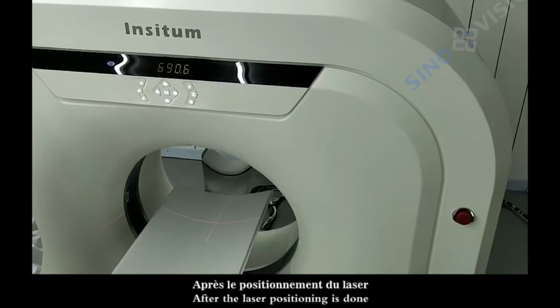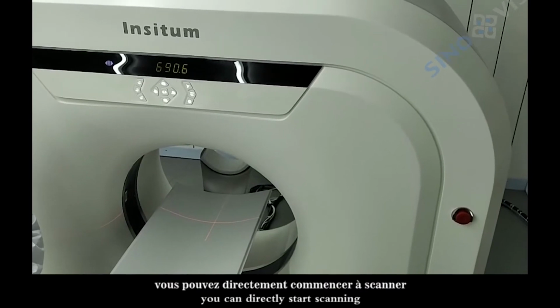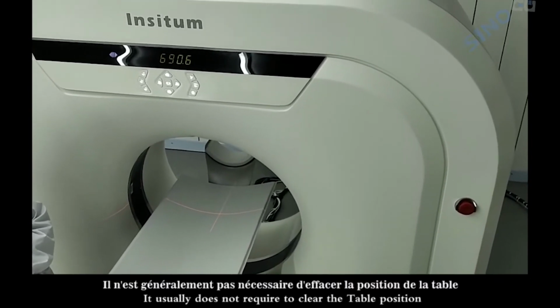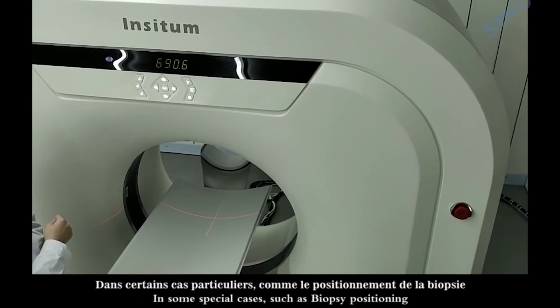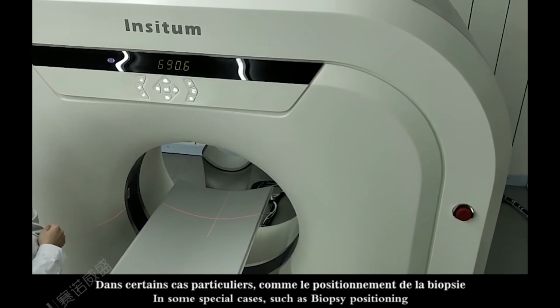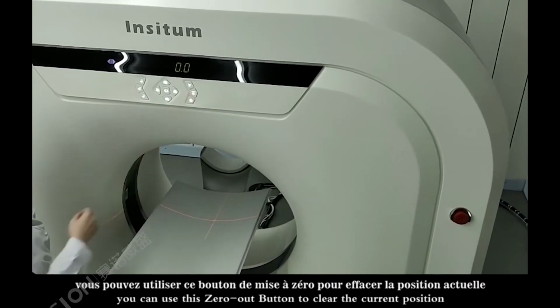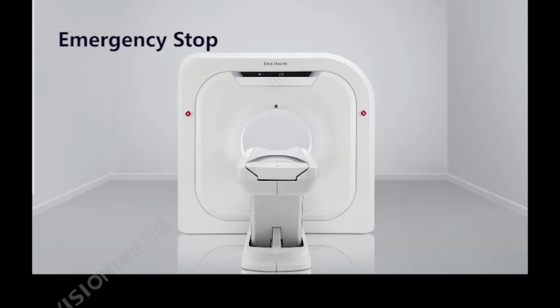After the laser positioning is done, you can directly start scanning. It usually does not require clearing the table position. In some special cases, such as biopsy positioning, you can use this zero out button to clear the current position.